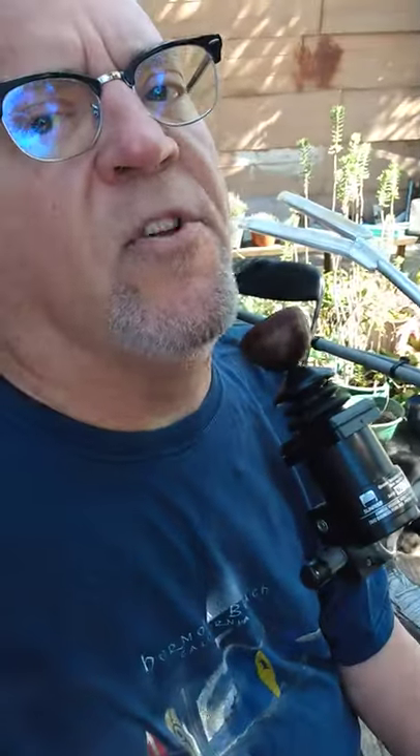The seat itself — its height and how far up my back it goes — was determined through trial and error to provide adequate support: not too encompassing, not too low, just enough to support me adequately but not too rigidly. I also sit on a seat cushion specifically designed to distribute weight and avoid pressure sores — that will be a big topic when we get to it in detail.